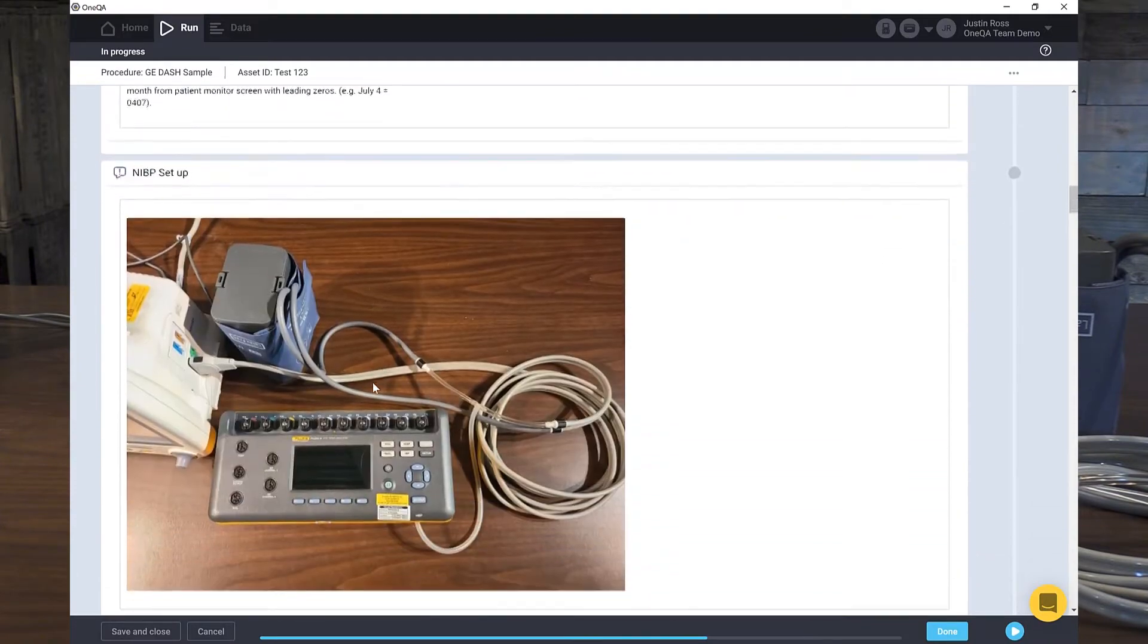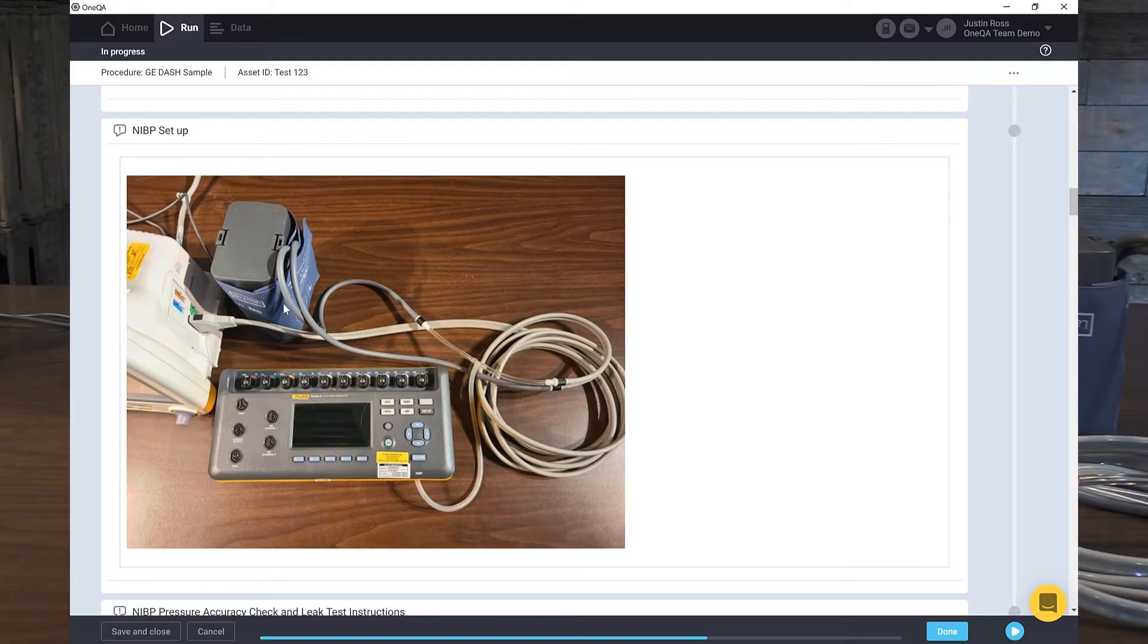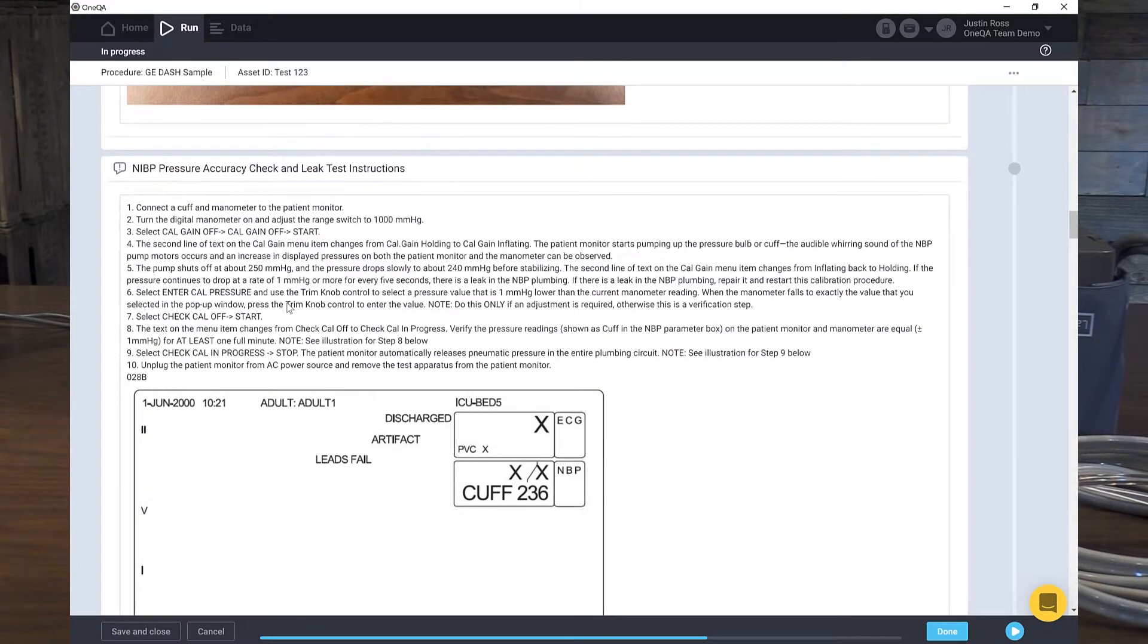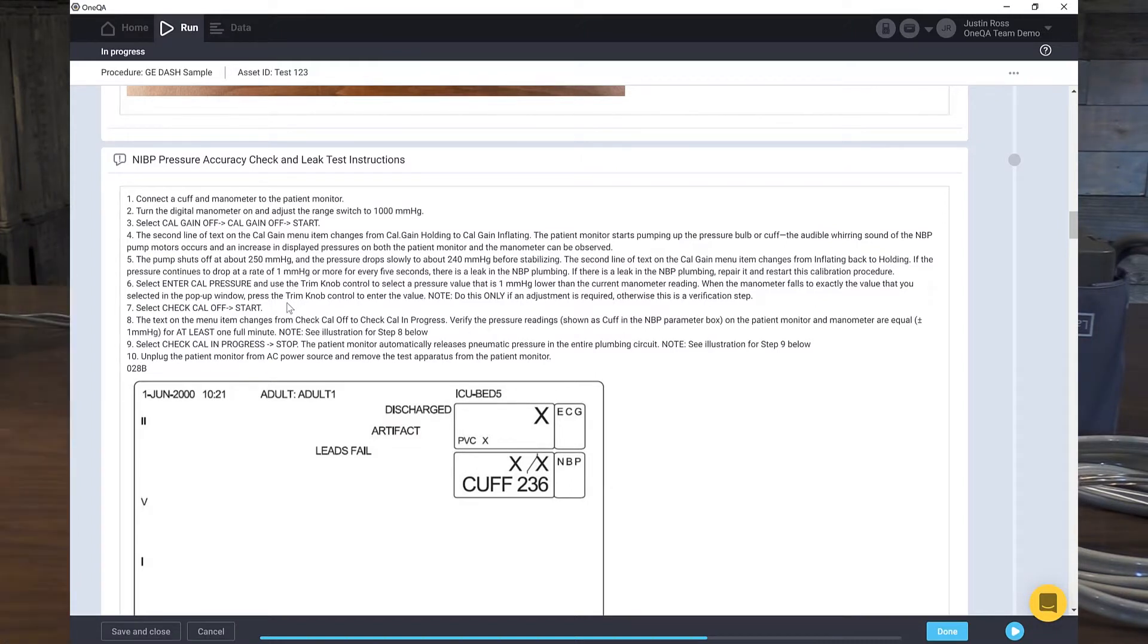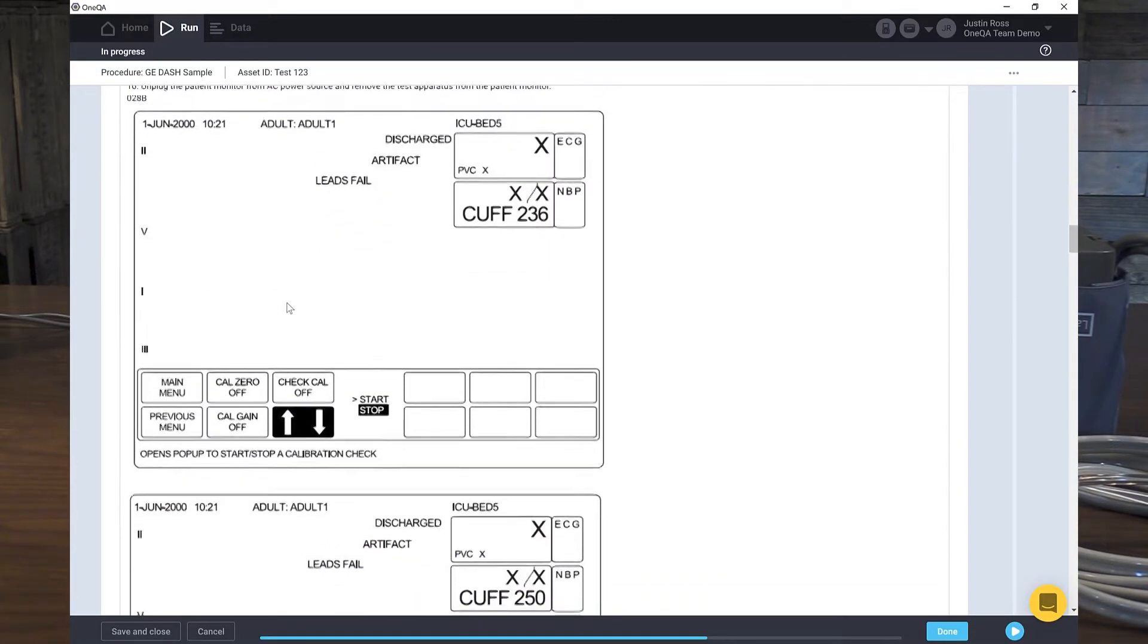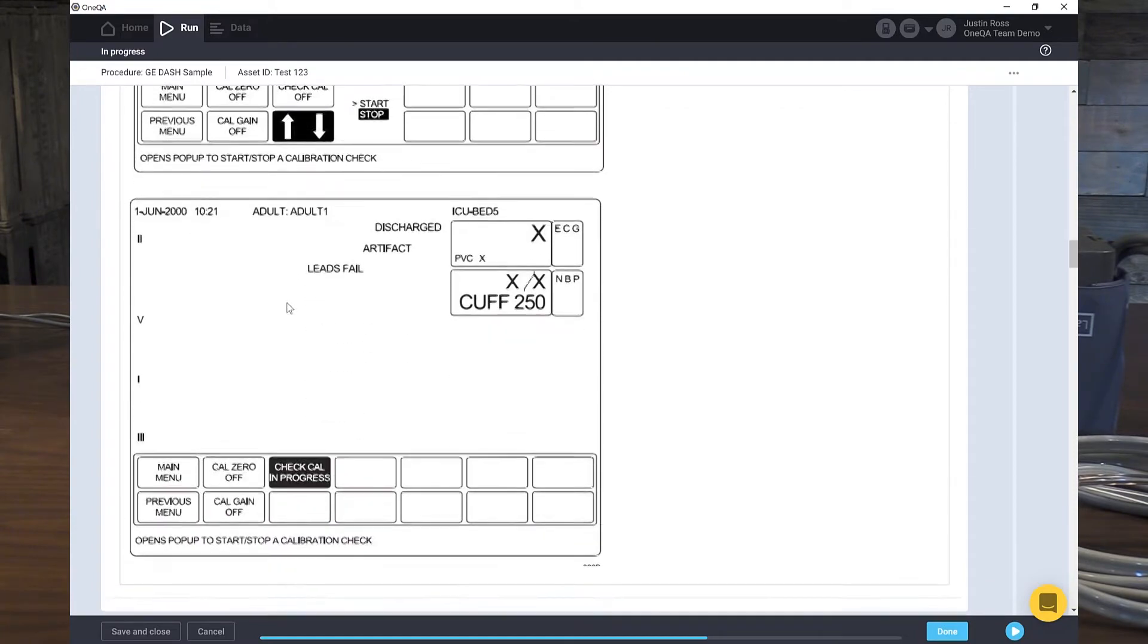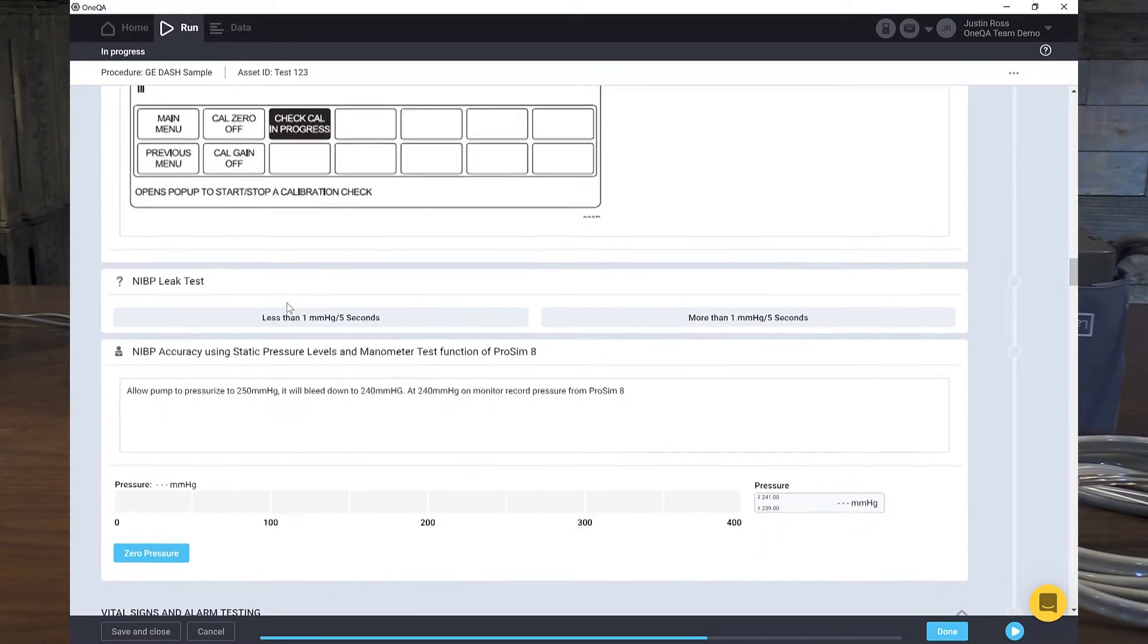All right. Next step. We're going to need to set up our non-invasive blood pressure. Here's a picture exactly how to set up. So here's my hose to my adapter and to my patient circuit with the cuff wrapped around the mandrel. That's already set up and done. And here's the instructions. We'd read through the instructions. We're going to go over here to calibrate and NIBP and cal check. All right. Hold up there for a second. Here's a diagram showing us exactly the keystrokes. We pulled us out of the manual and embedded it. So we have no question about what we need to do. We're actually going to do two tests at once. We're going to do the non-invasive blood pressure leak test as well as the NIBP accuracy test.